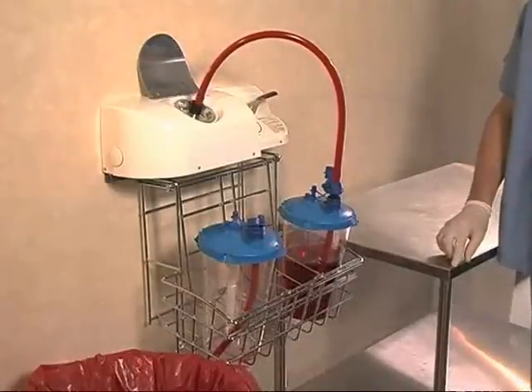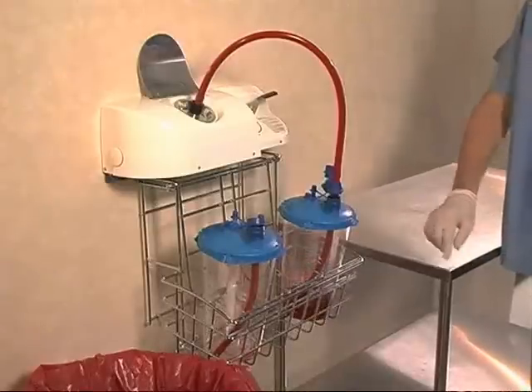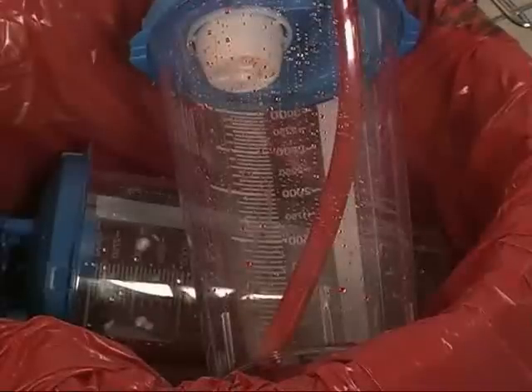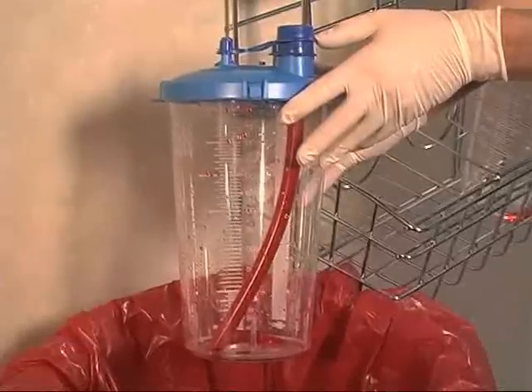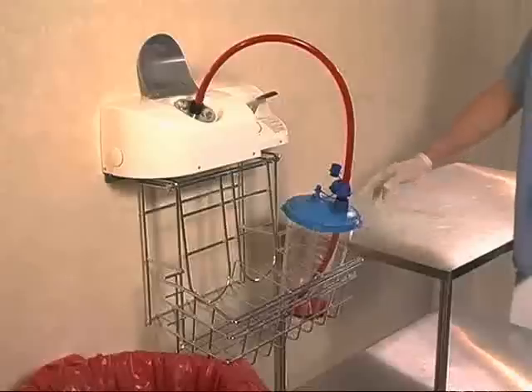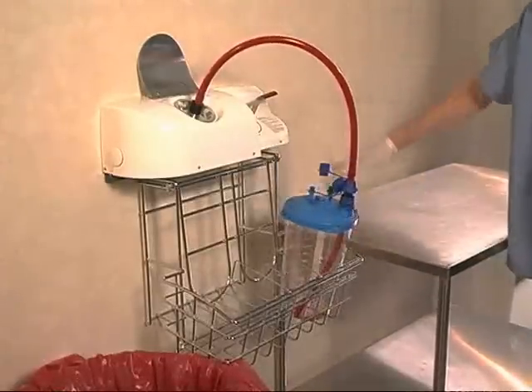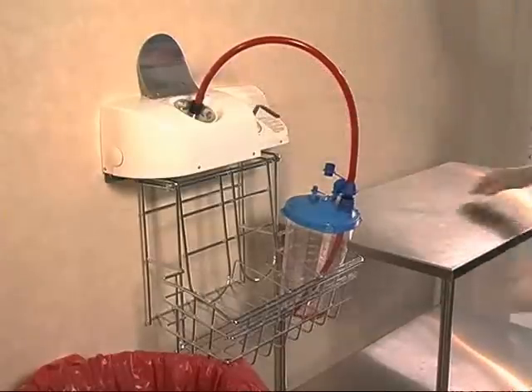The pump remains on during this process to ensure any fluid remaining near the connection does not drip. In the next step, he recaps the accessory port on the suction canister lid, preparing the canister for disposal via red bag waste. The dip tube remains inside the canister and is discarded with the empty canister. When the last canister is emptied, the pump tube remains parked on the empty canister to keep the pump tube closed and reduce the possibility of exposure to medical waste.